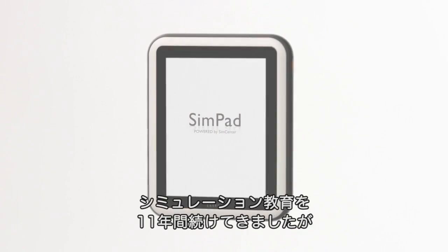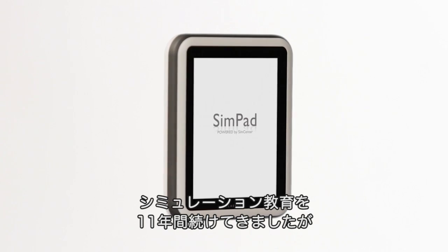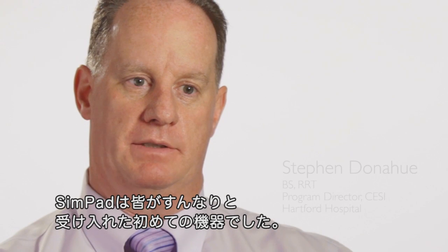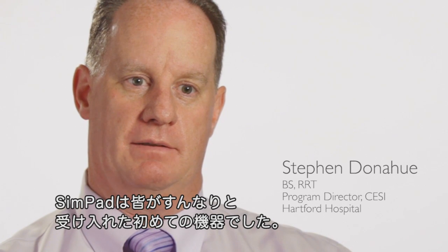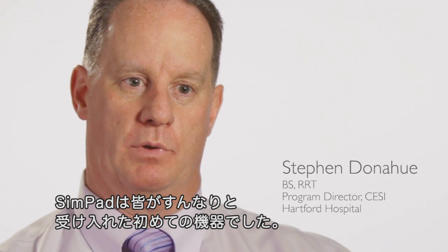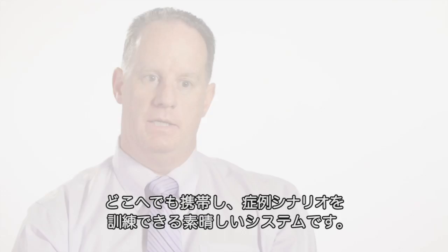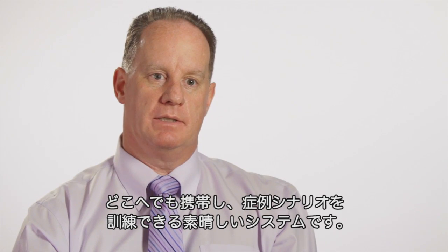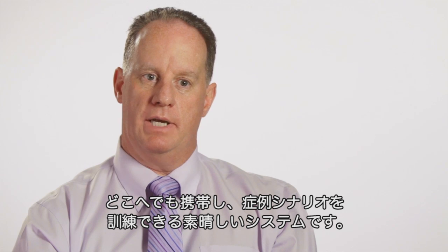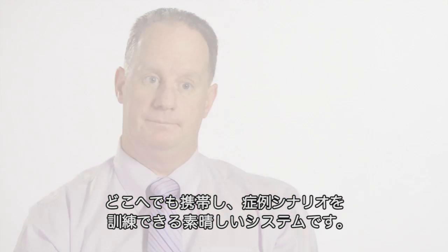We have been doing simulation education for over 11 years now. It is the first piece of technology that I have seen accepted by everyone across the board with no resistance. It's truly a system that you can grab and go and do cases and scenarios in any location.